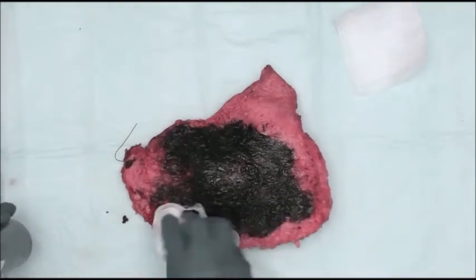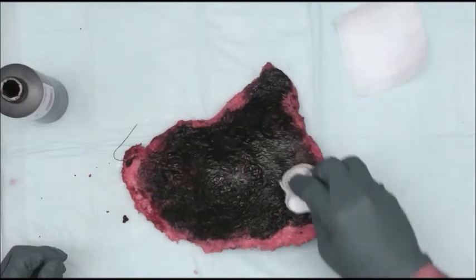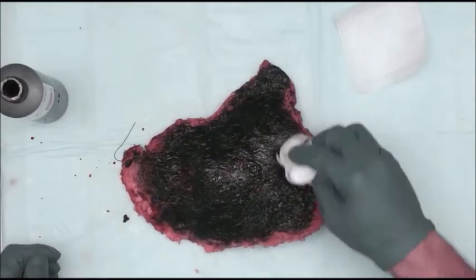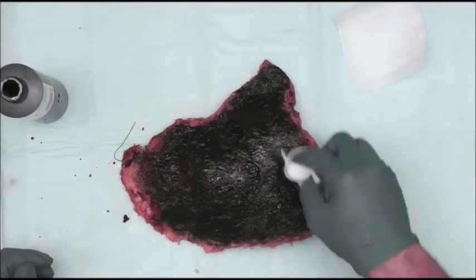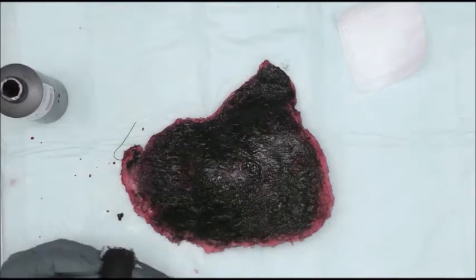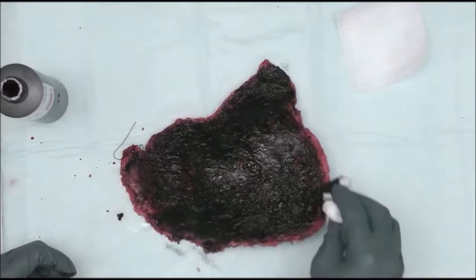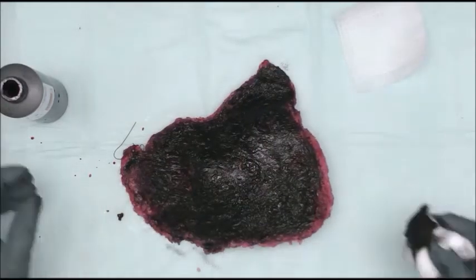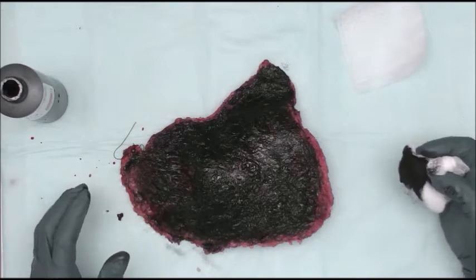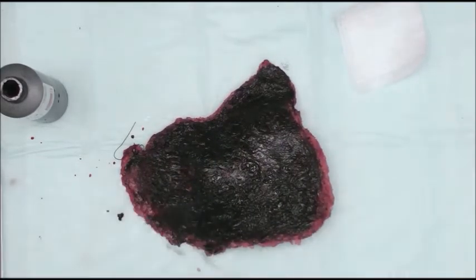intraoperative diagnosis or intraoperative examination. So I'm just going to go around here and continue inking the deep aspect black. I think most places do this. And you'll notice I'm doing this on top of a chuck, but I've got the smooth, non-absorbent side up, and I'm doing that on purpose.